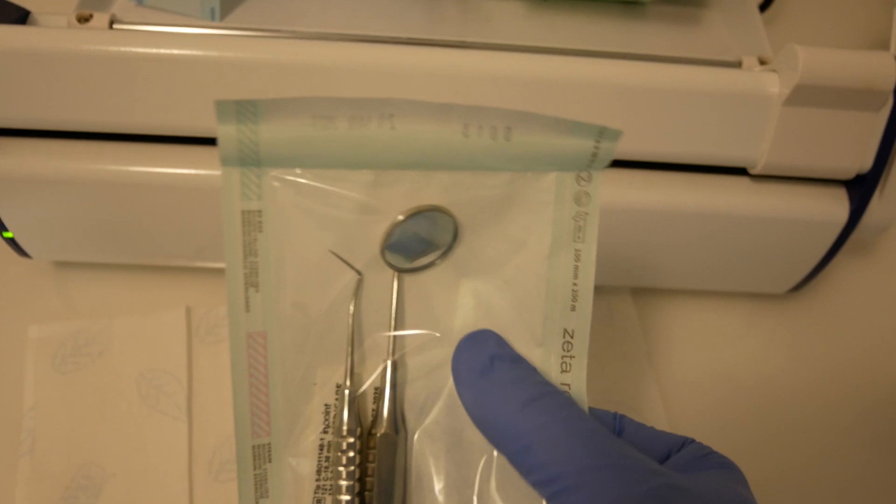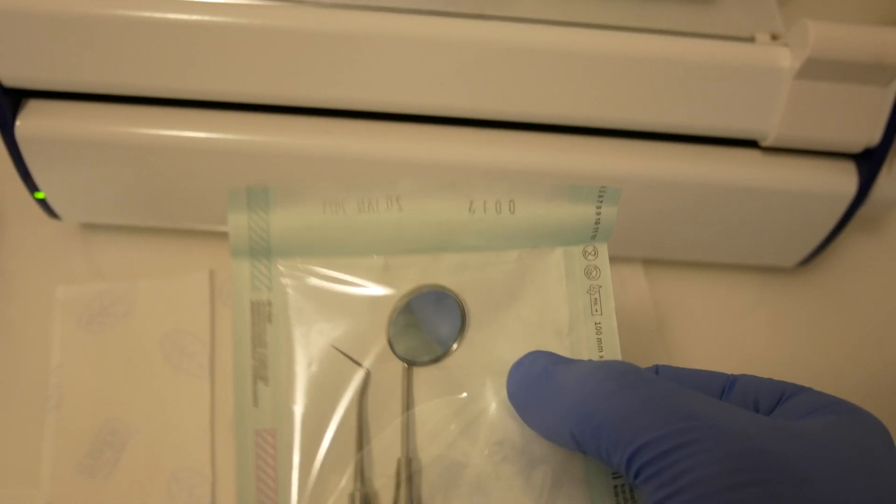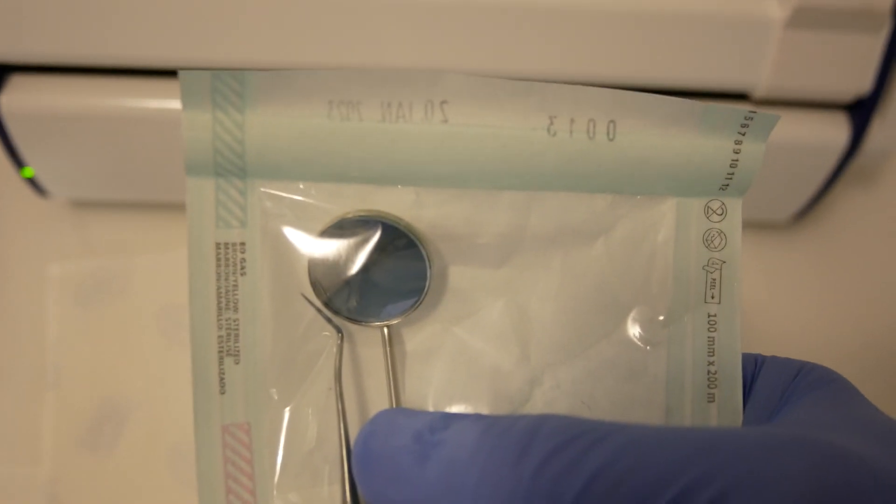Very important, on each and every bag, you need to check the seal. If the seal has any sort of discontinuity, you need to repackage those instruments.